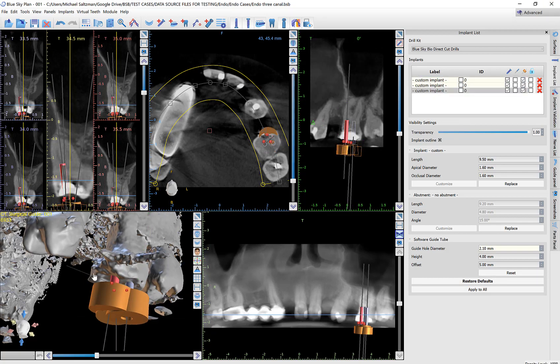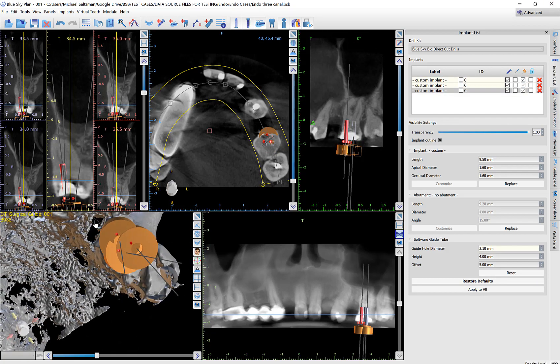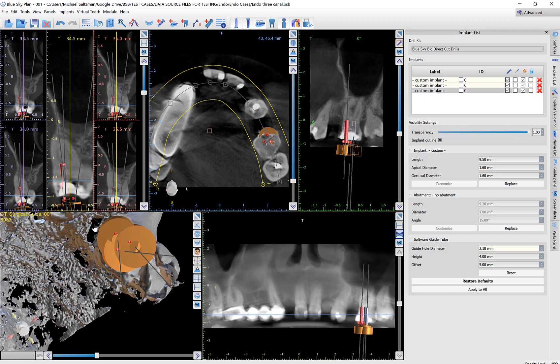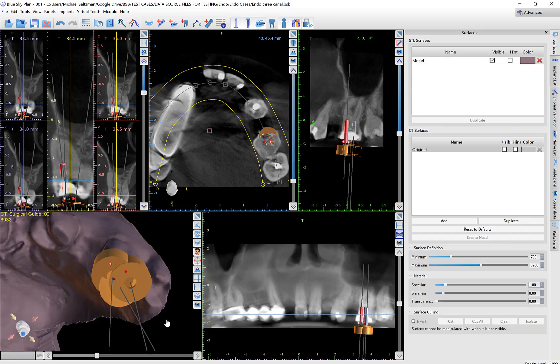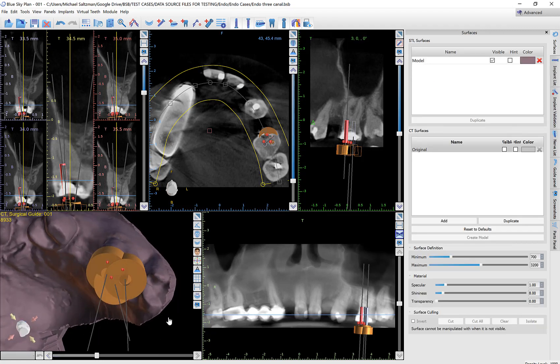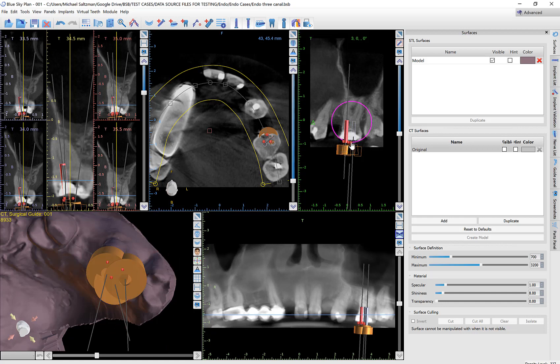We can see on screen that the software guide tubes are overlapping each other and look a bit messy, but the software will take care of that when we create the surgical guide. We have different verification warnings — we can either update the verification panel or ignore them, because we know the implants are closer than they would be in an actual implant surgical guide case. That's what these red exclamation marks indicate.